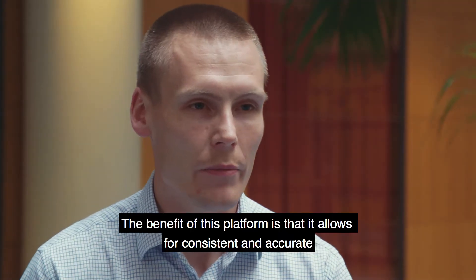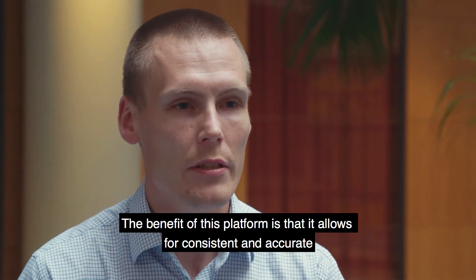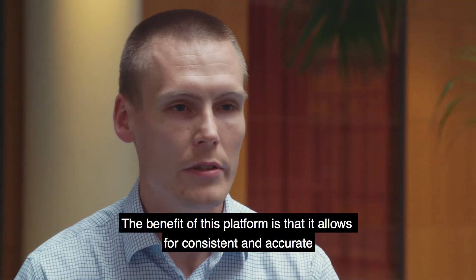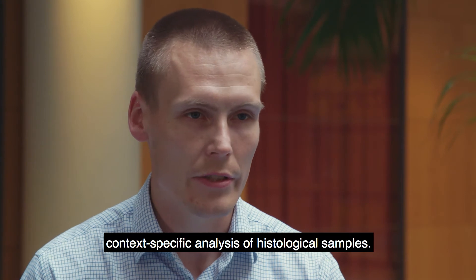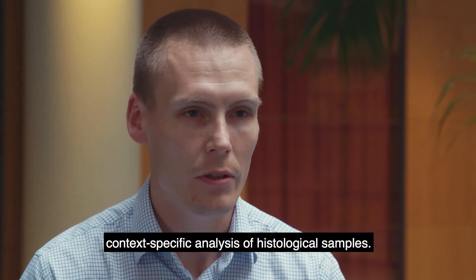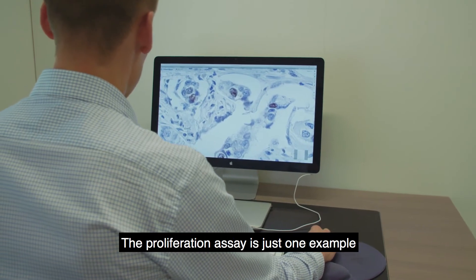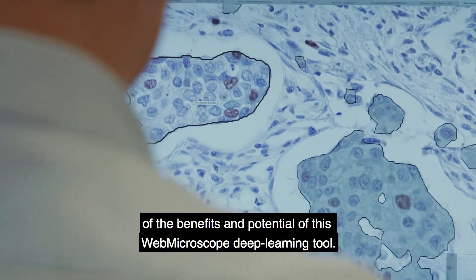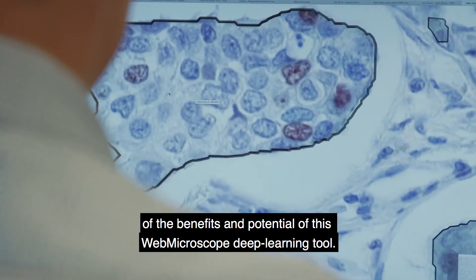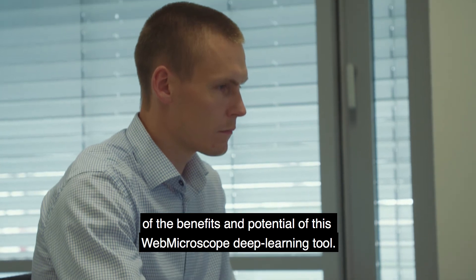The benefit of this platform is that it allows for consistent and accurate, context-specific analysis of histological samples. The proliferation assay is just one example of the benefits and potential of this web microscope deep learning tool.